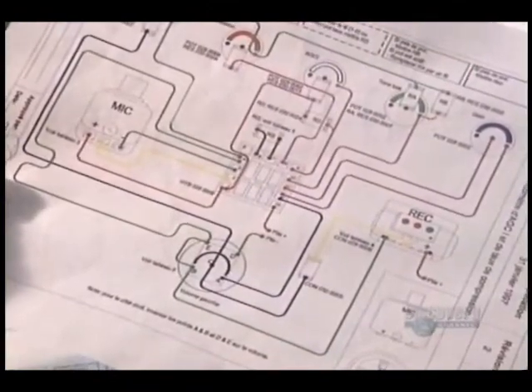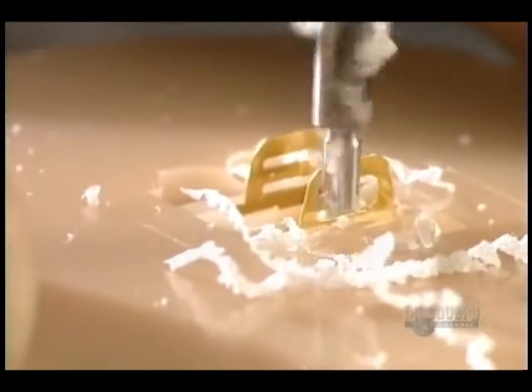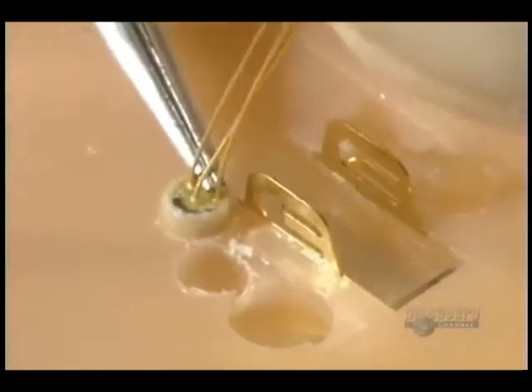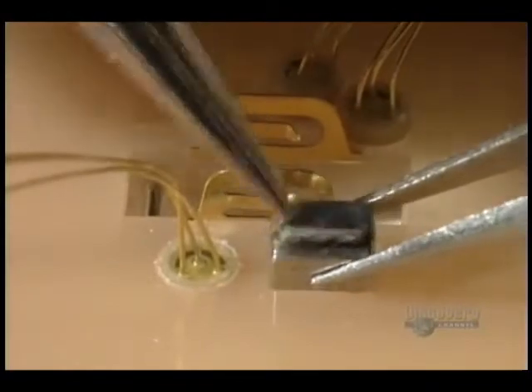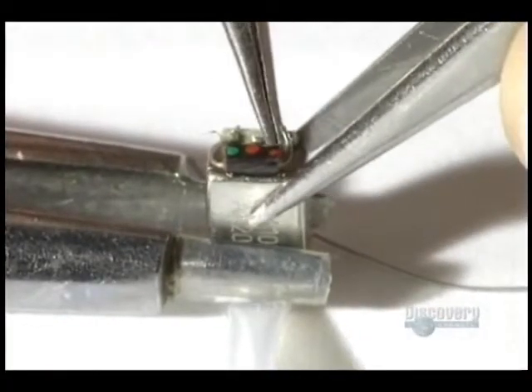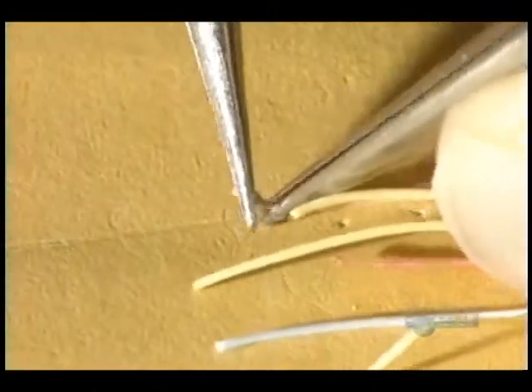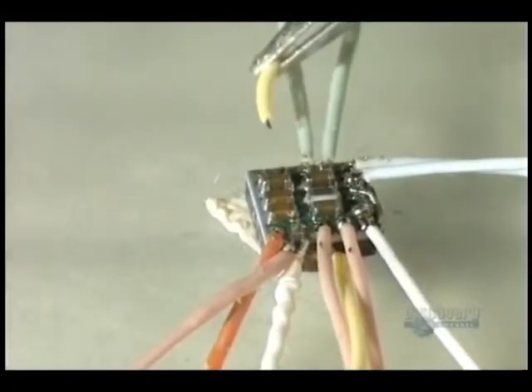This plan details the electric circuit of the amplifier. Holes are pierced for the volume control. These components are tiny — here is the volume control. The miniature microphone captures sounds and the earphone functions as a speaker. This tiny braided wire of seven conductors is soldered to the amplifier and the other parts of the prosthesis with pewter.